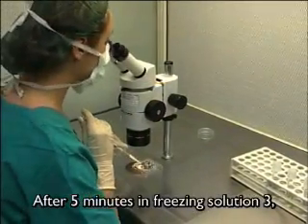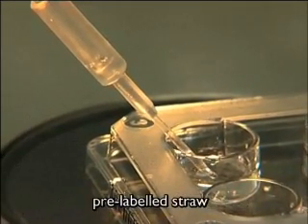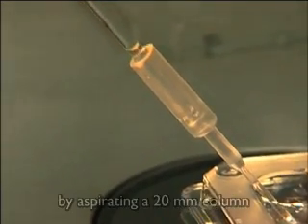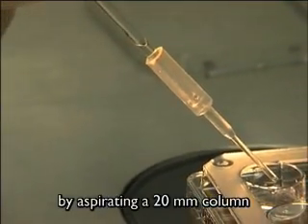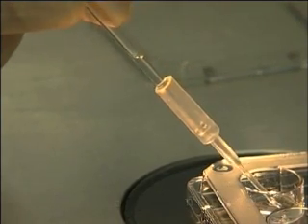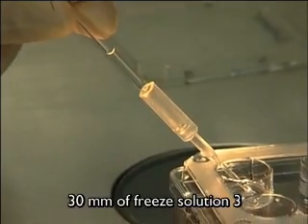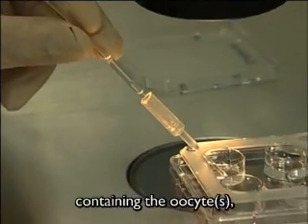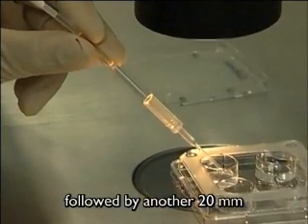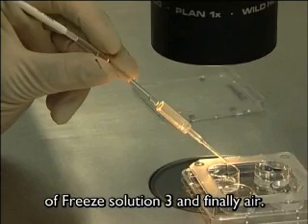After 5 minutes in freezing solution 3, the oocytes are loaded into a pre-labeled straw. The straw is filled by aspirating a 20 millimetre column of freeze solution 3, followed by 10 millimetres of air, 30 millimetres of freeze solution 3 containing the oocytes, 10 millimetres of air, followed by another 20 millimetres of freeze solution 3, and finally air.